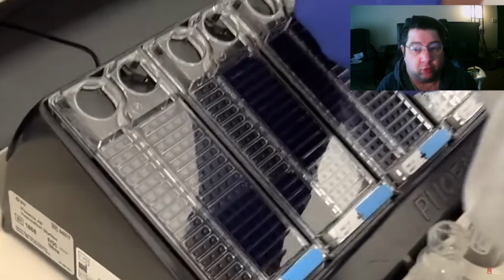I've only worked at one place that uses that. I've used it kind of during my initial training. I was at the place that I worked where they had this instrument. I was doing specimen processing, so I wasn't involved in any of the MIC testing or anything like that. But it looks like MIC style testing.